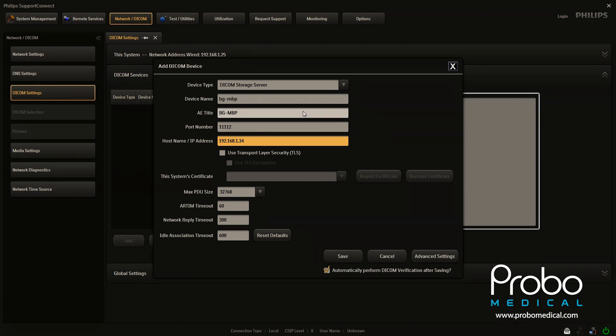So we've got the device name and this is what the device is just going to be commonly called. And with all PAC servers and hospitals and doctors offices, the name can be a lot of different things. You can choose the name.